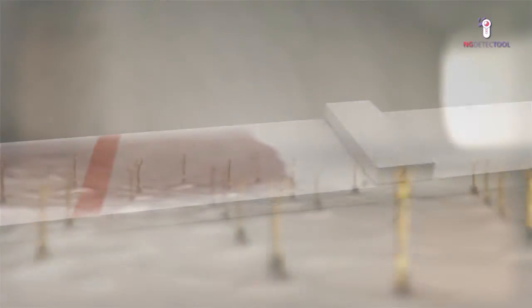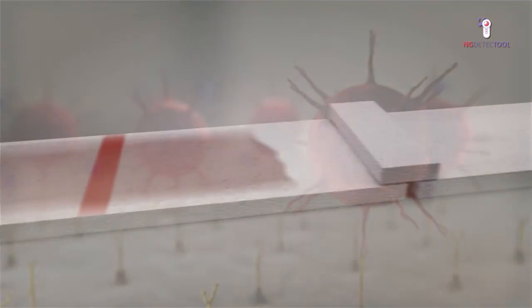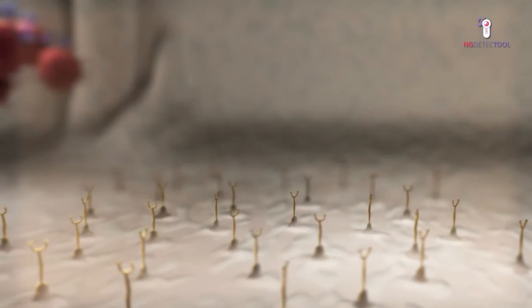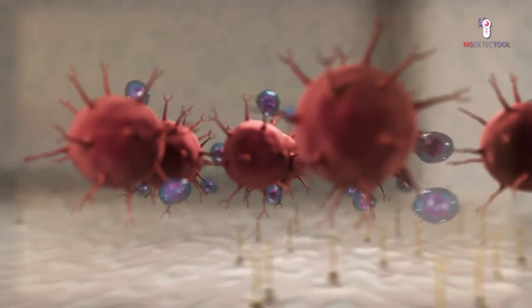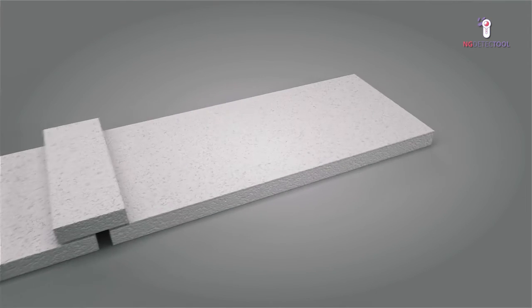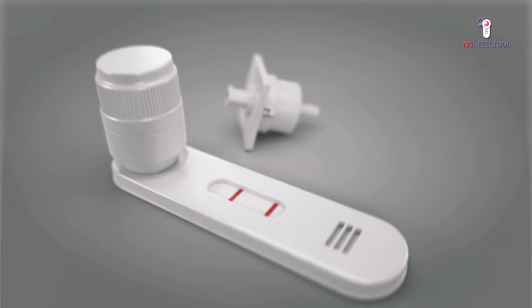The free antibodies will recognize the control line and a colored band will also appear, indicating that the test has been successfully performed. If no antigens are present in the sample, the conjugated antibodies will only react with the control line, so a single band will be visible.